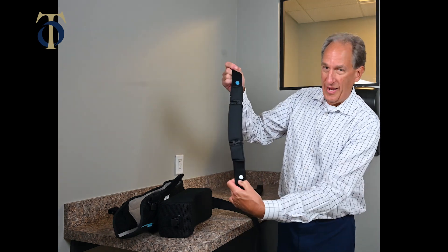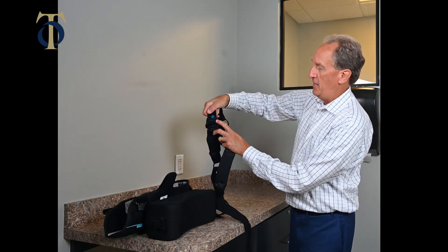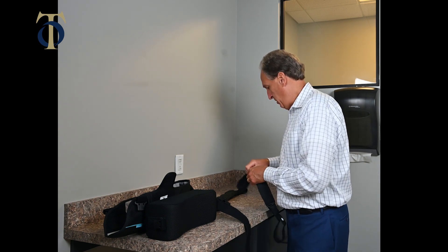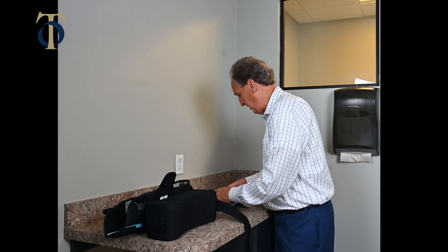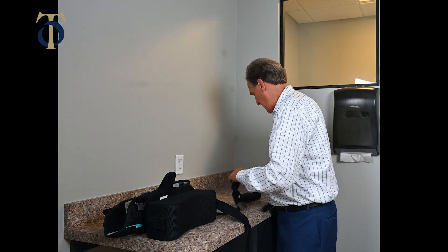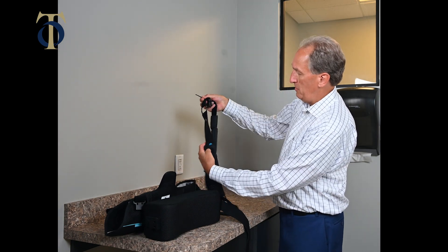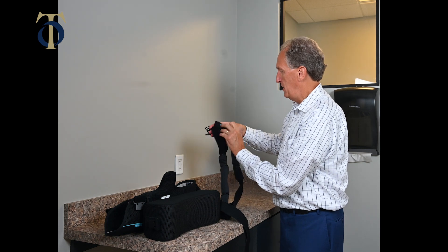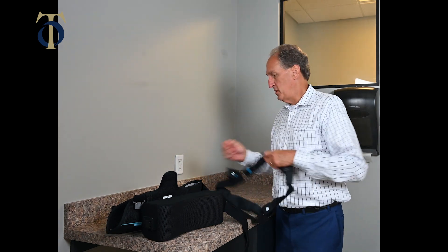The second strap has a blue dot and a white dot. The strap that goes around your neck also has a blue dot and a white dot — the blues match up, the whites match up. I'm going to attach the whites together and the other end through the ring where the blue dot is, keeping whites together and blues together. Now we've made a circle in the sling, and that is going to go over the other arm. This is all just in case it comes apart and you're trying to figure out how to get it back together again.